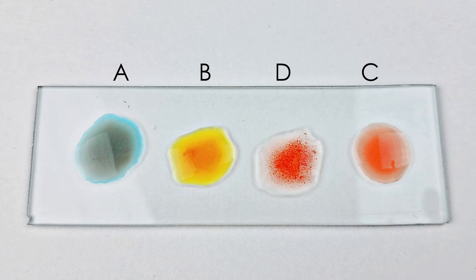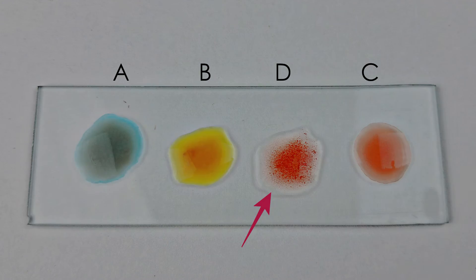In the blood sample that we have tested in this video, agglutination or clumping could be seen only in the third blood drop, which is the one mixed with the antisera D or anti-RHD antibody reagent. This clumping pattern can therefore be interpreted as the blood group O positive, based on the image collage previously shown.